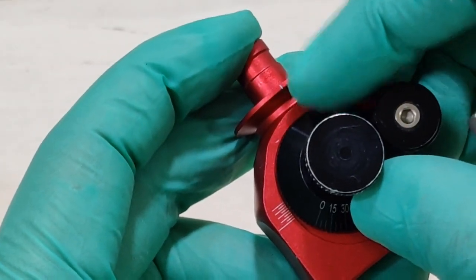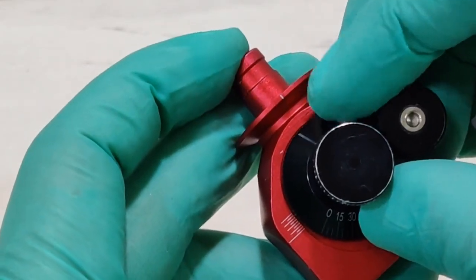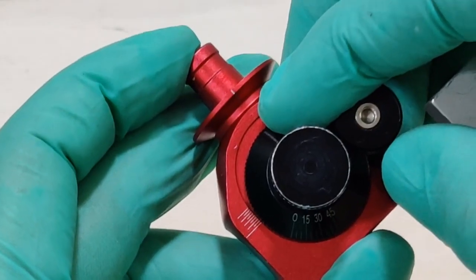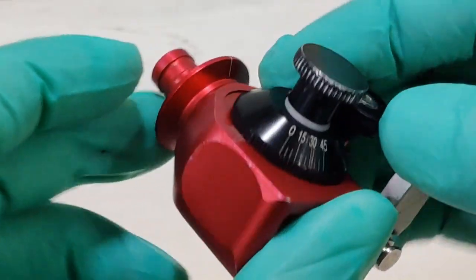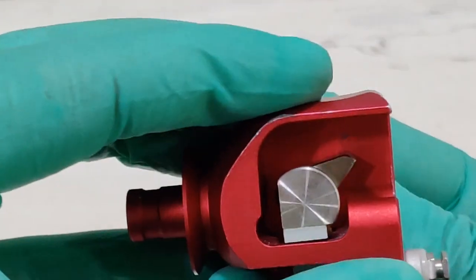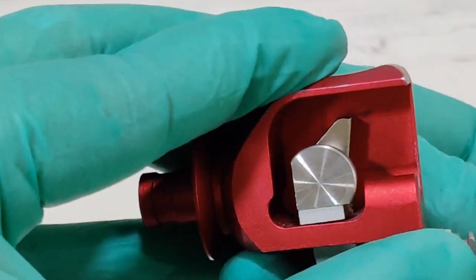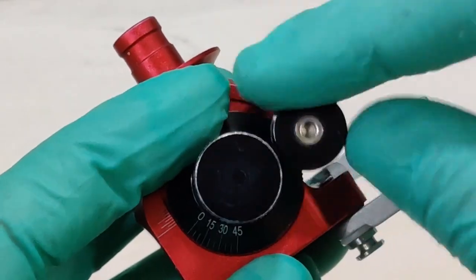When I keep the pin here, that is, move the ball all the way inwards, it means I have kept the side shift at +4. When I move it all the way out, I have kept the side shift at 0. I personally prefer, of course, to keep it at 0 at all times because I am a big believer in centric relation. As I look to the base, recognize the fact that as I move side to side, the entire condylar element is moving. Now this is my immediate side shift. I keep it in this position. In this position, the immediate side shift is 0. I go ahead and lock this down.